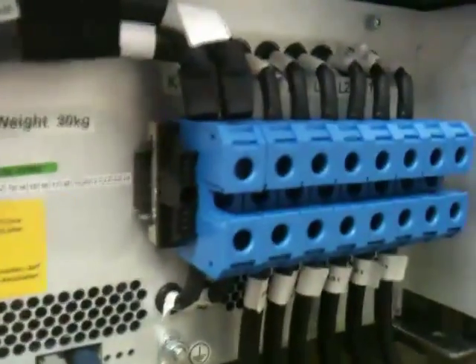This is a little bit more interesting — this is the controller for the shim magnet. It's used to correct for any inhomogeneities or irregularities in the main superconducting magnetic field. This unit has a lot of connections to it, so it's probably quite important.